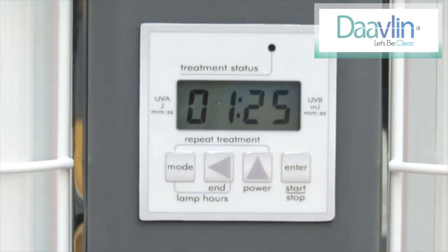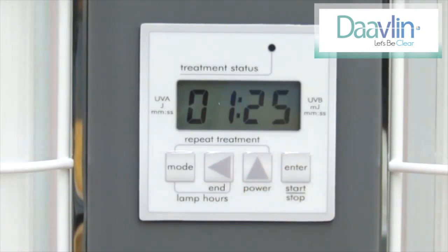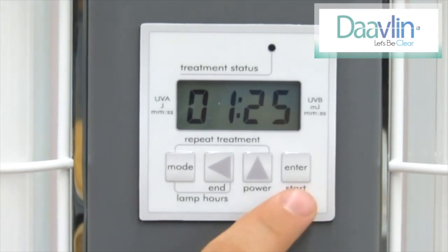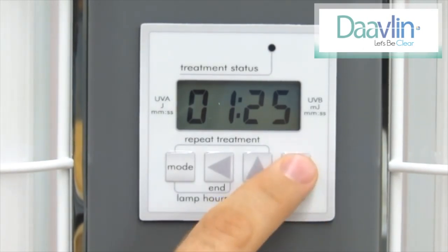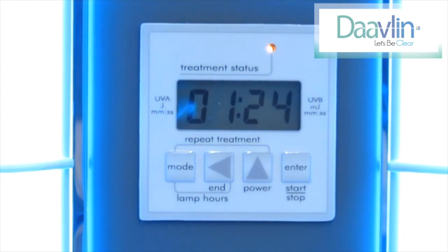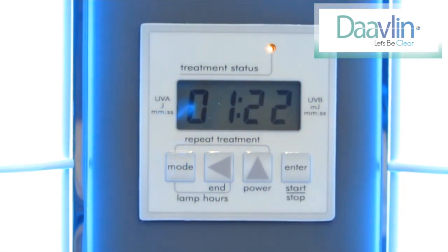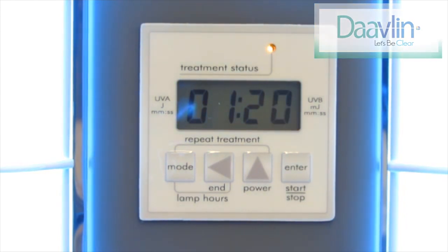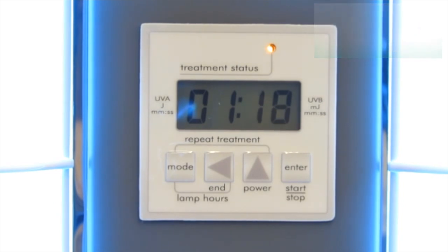We are now finished programming the treatment. When you are ready to begin, simply put on your goggles and press the enter key one time to start the treatment. Now you know how to program and run your phototherapy unit equipped with our digital timer control system.